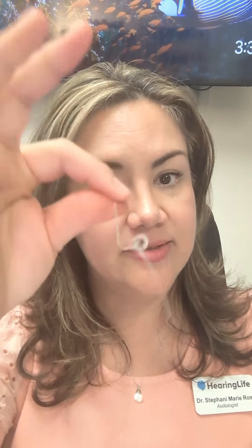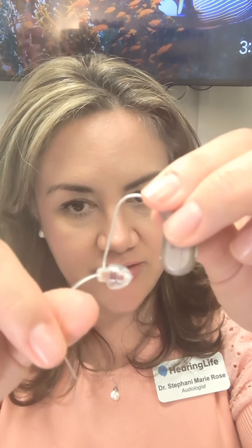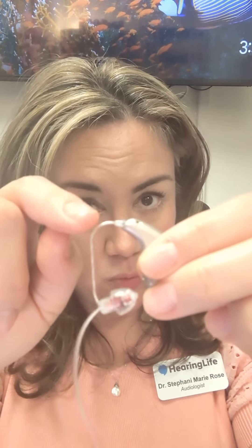In the morning, we're going to go ahead and put the hearing aid in our ear, starting with the right side. For this kind of hearing aid, you're going to start by placing the behind the ear piece just right on top of your ear. If you go back too far, it won't be in the right spot when you go to put in the dome. We have the dome, the retention line, the electronic speaker wire or receiver wire, and then the behind the ear piece with the microphones, the battery, the computer, the user button — which your hearing care provider will set up for either volume control or a program change. Just refer to your packet for what you have.